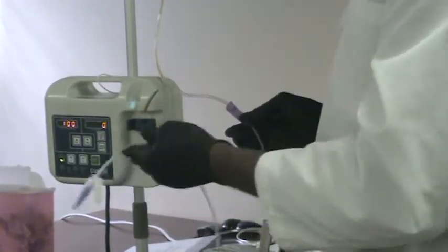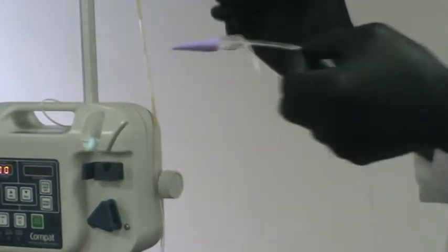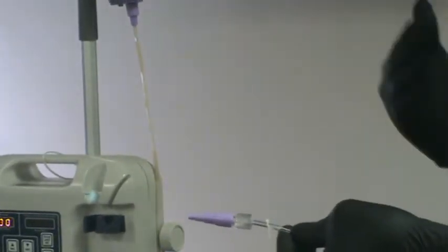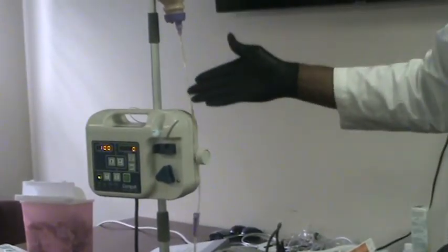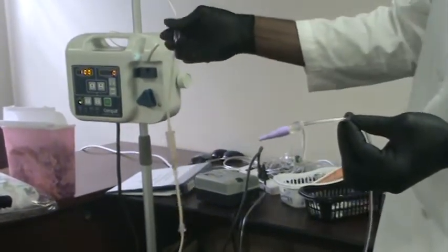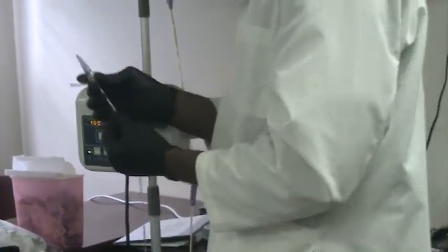You can't just connect it like that. You have to prime the tube, which means let the feeding come out all the way to here before connecting. Otherwise, if you connect it and start the feeding, it will push all that air from here to here into the stomach, and you don't want that. It will give out gas. So you put this on, open it, it will start flowing all the way. When it gets to about here, then you clamp it to stop the flow. Okay? Then you can connect it.